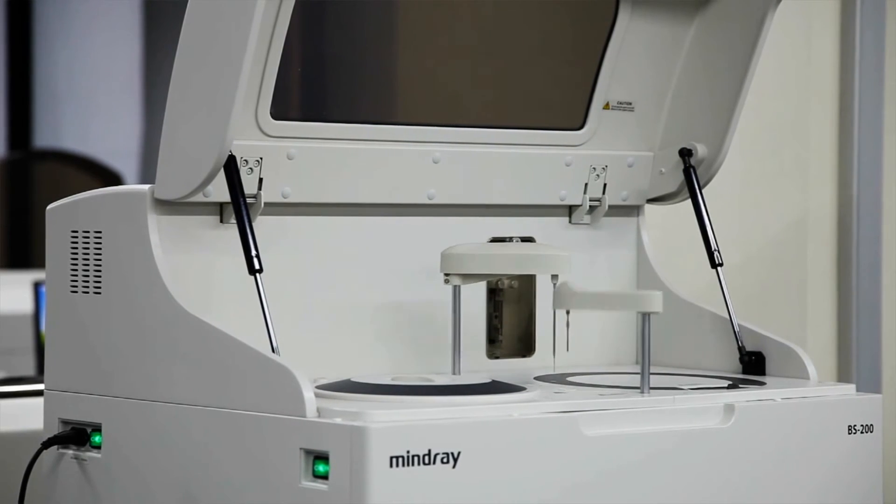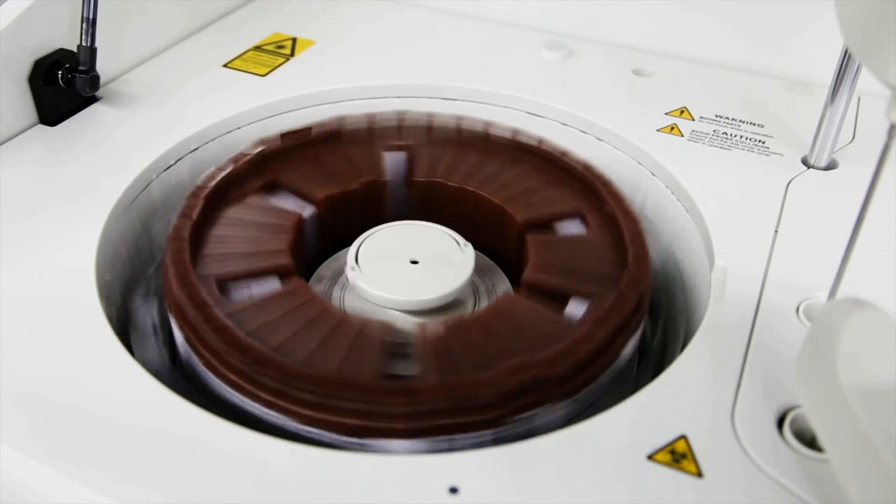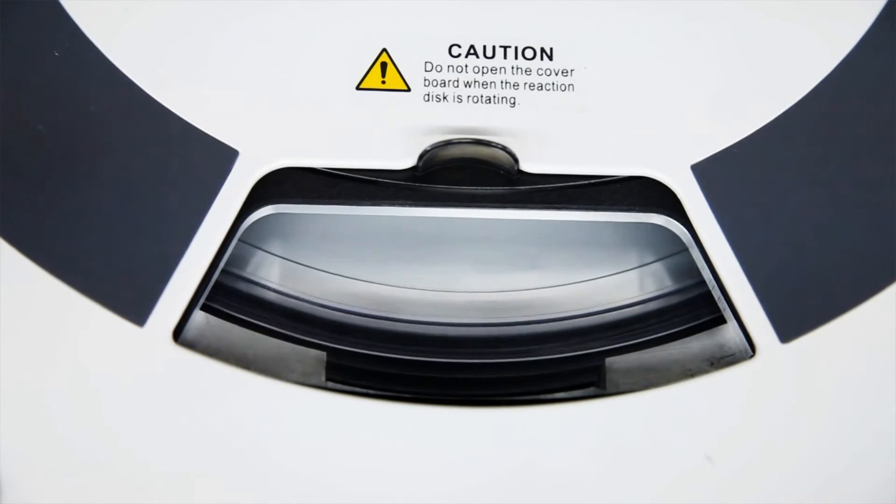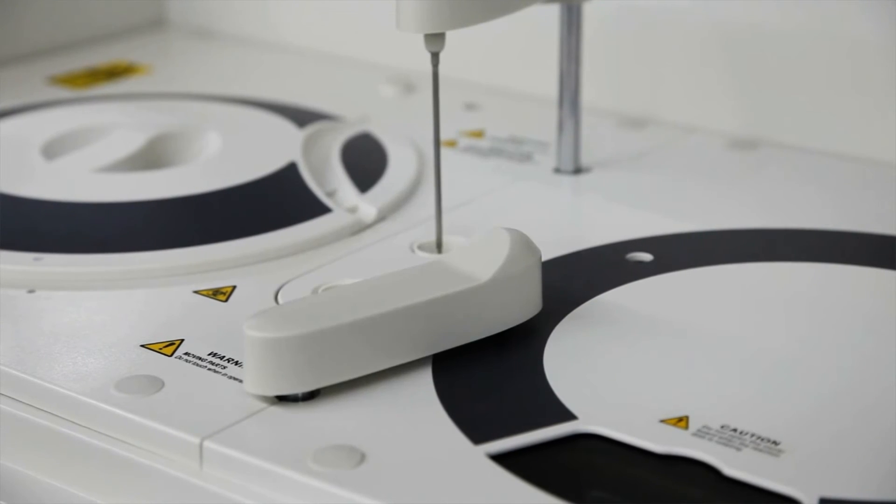The BS200 Analyzer has a mean time between failures of at least 12 months. This unsurpassed reliability makes the BS200 the best of the best amongst its competition.